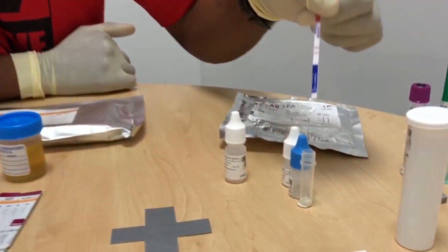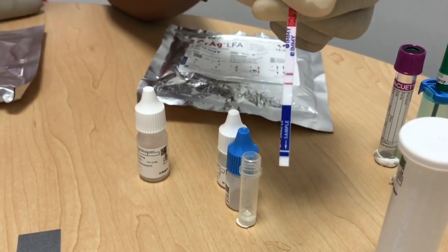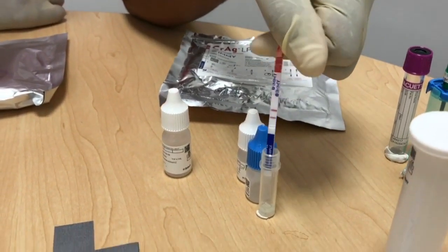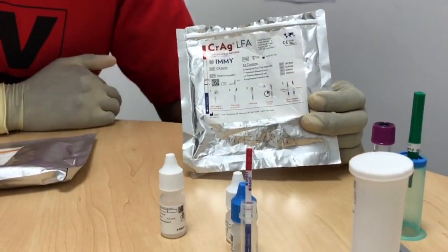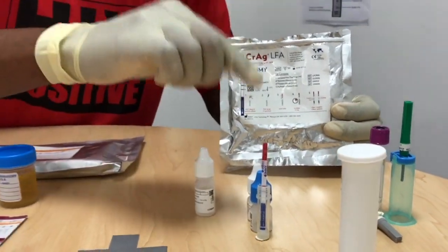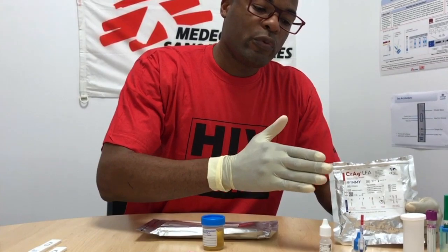Moving on to the CrAg test result: it has two lines, and two lines means positive. This patient has cryptococcal antigen in their blood and will require aggressive management. We are also looking at working with the company that makes the CrAg to develop a semi-quantitative version that can tell us when the titre is at 1:160 or above, because the level will either trigger preventive treatment or curative treatment.